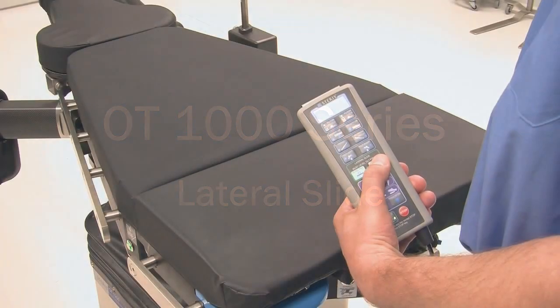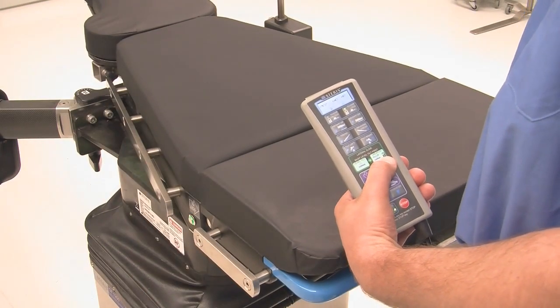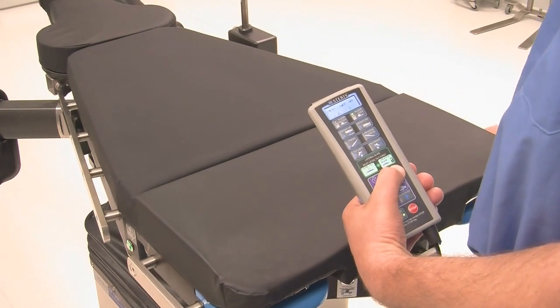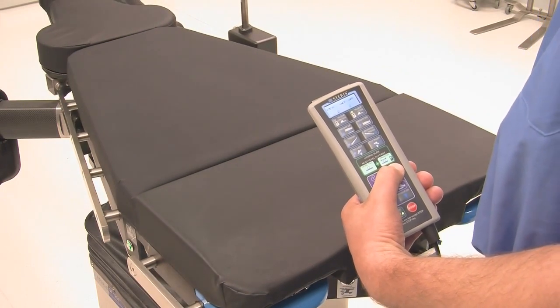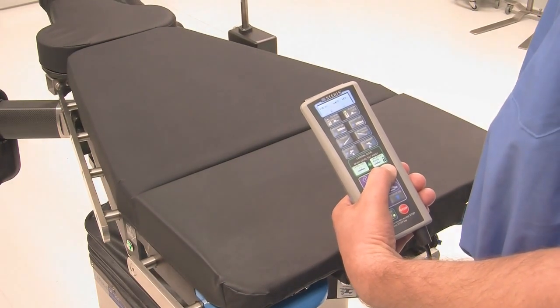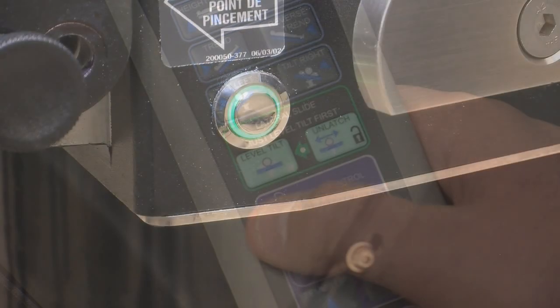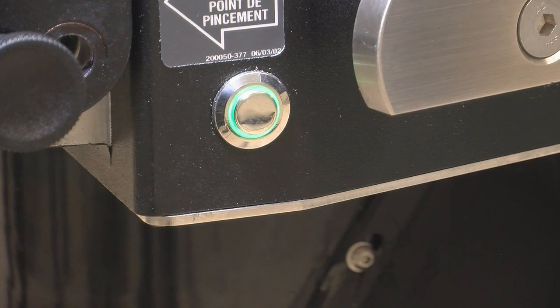The lateral slide function on the OT1000 series tables will open the image window for surgeon exposure to achieve unobstructed imaging in most cases. You may translate the tabletop through the hand control or button on the side of the table to improve surgical access to the patient and achieve greater imaging of the site.